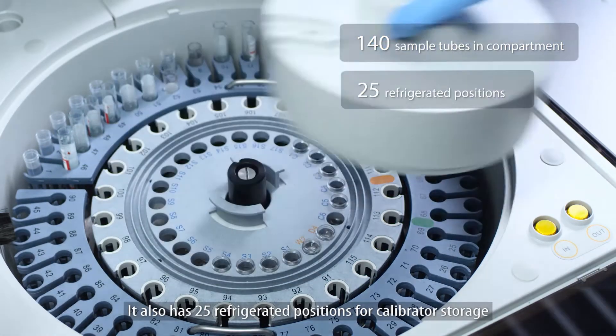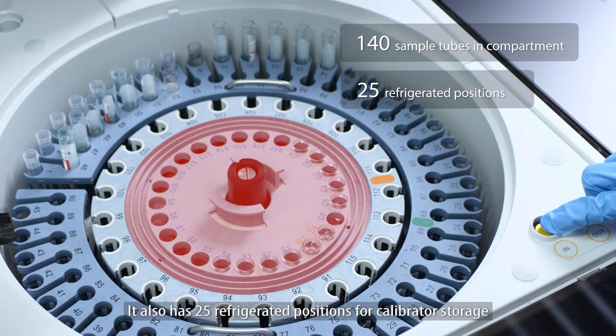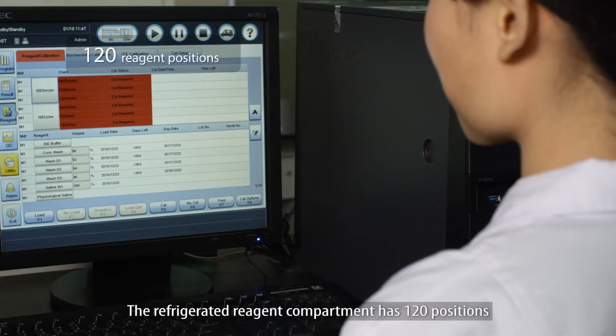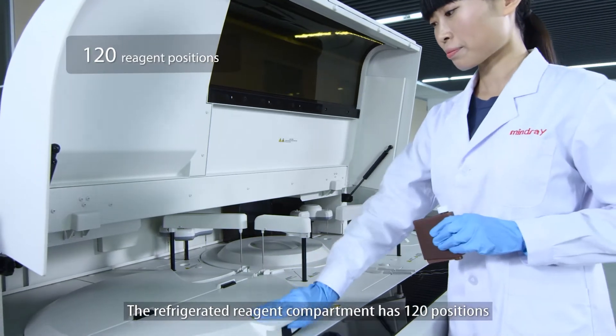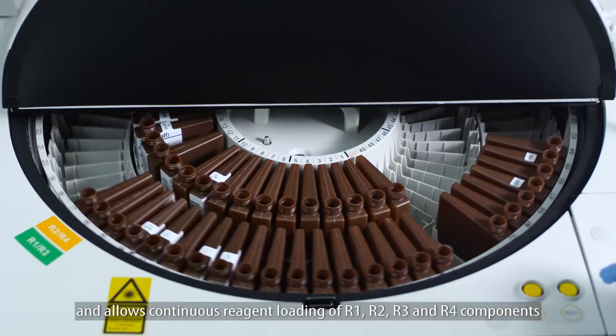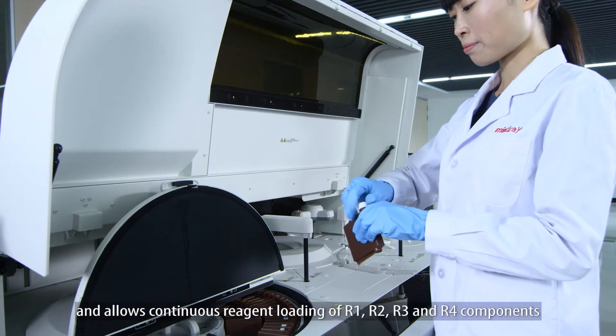It also has 25 refrigerated positions for calibrator storage. The refrigerated reagent compartment has 120 positions and allows continuous reagent loading of R1, R2, R3 and R4 components without stopping the system.